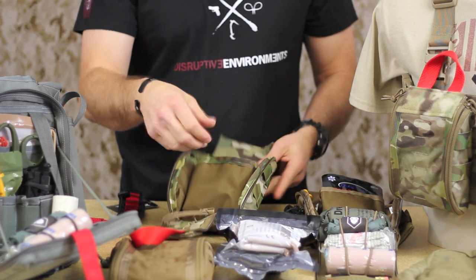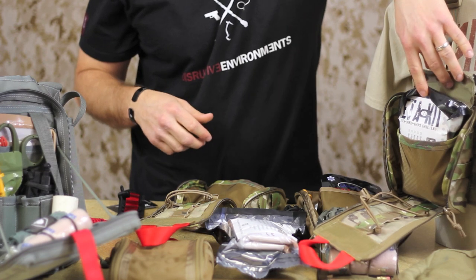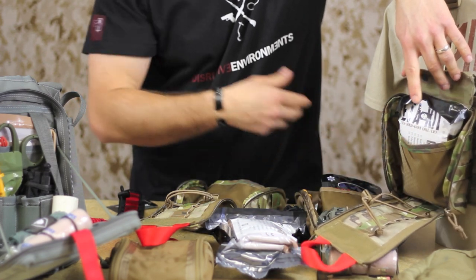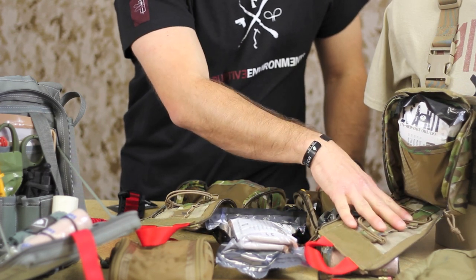As you can see in the rear here — there's a little dummy here — that's how our sealed kit fits into the pouch. It fits in that large opening pocket in the back. You've still got access to put other components in as well if you want to store other things in the pouch.